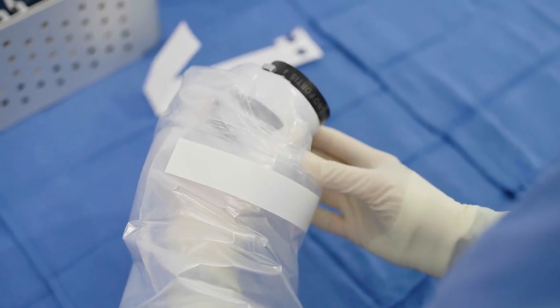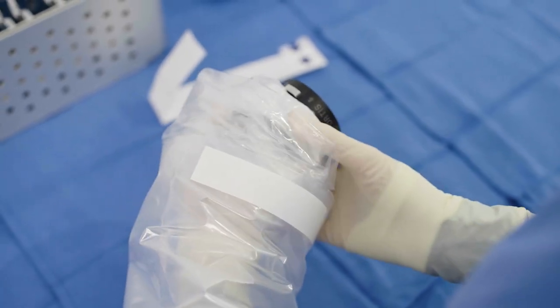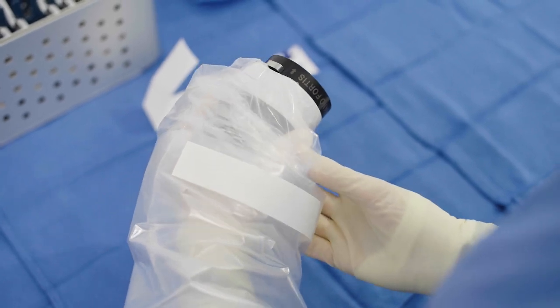Ensure that the adhesive tape is properly attached and completely surrounds the adapter so that fluid cannot ingress.